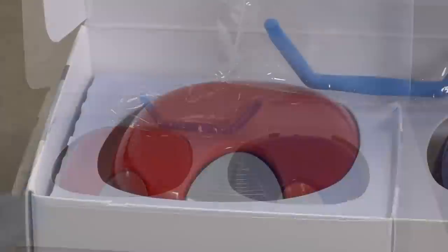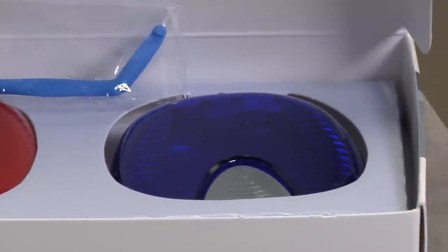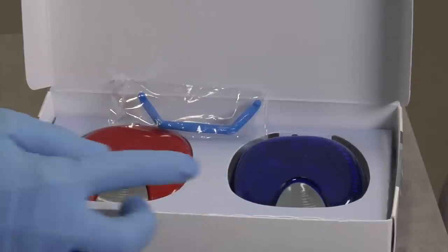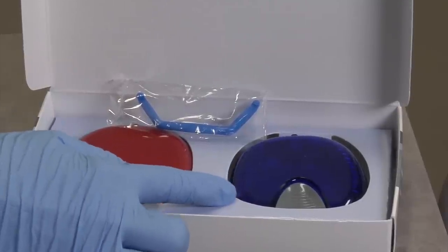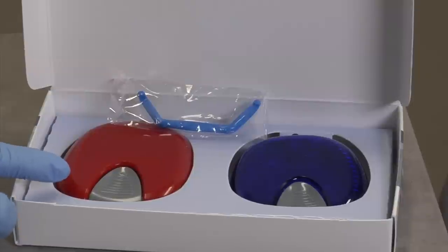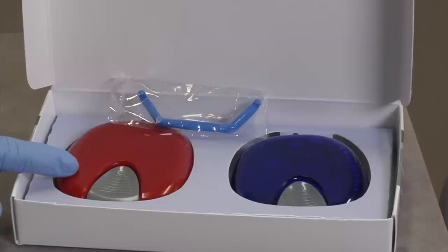To keep care of your aligners, you'll leave with two different cases. One case is for your current aligner — since you'll be wearing the aligner all the time, always keep it inside the case when it's not in your mouth so you don't lose it. We always ask patients to keep the last two aligners in case you need to fall back on one of the trays if you're not ready to progress to the next one. The red case you can keep for your last two aligners.